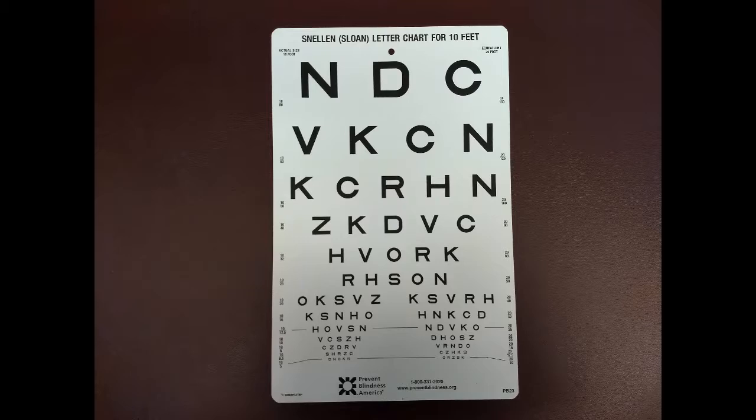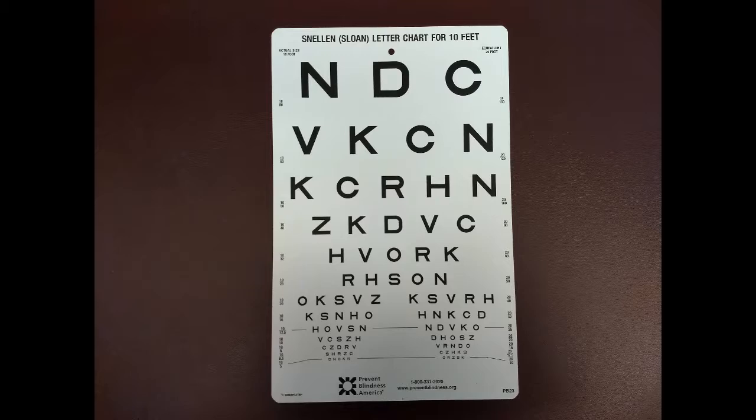Most Snellen charts require the patient to stand 20 feet away. However, some charts, such as the one shown, indicate for the patient to stand 10 feet away.